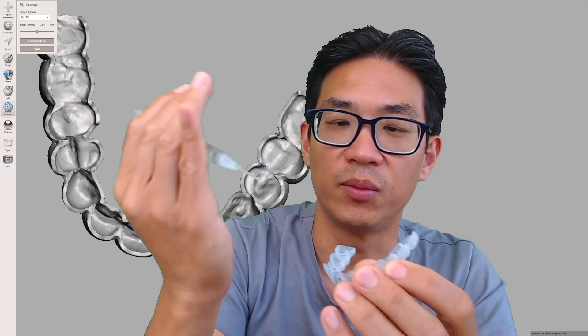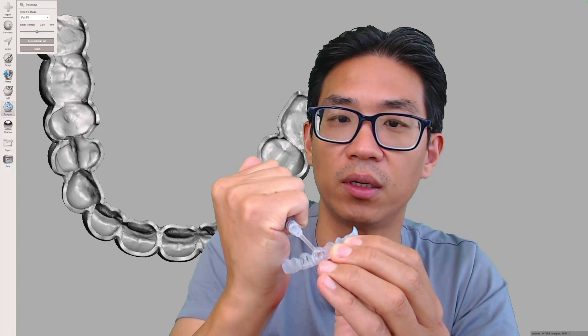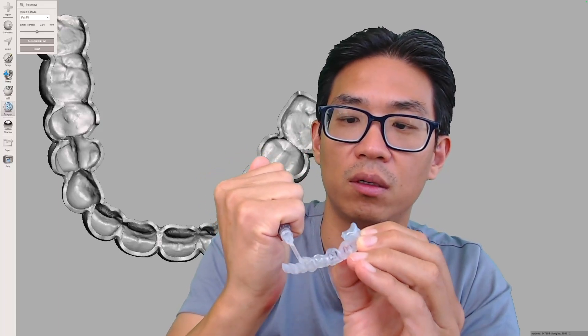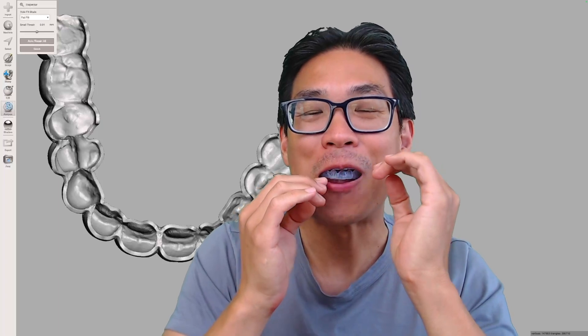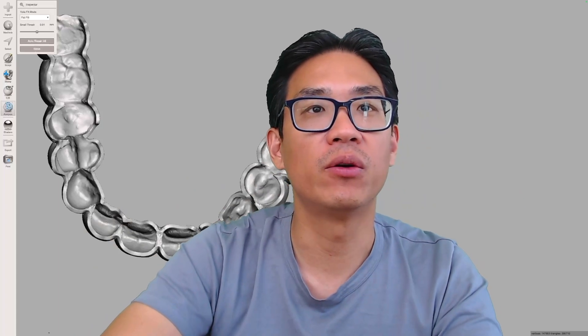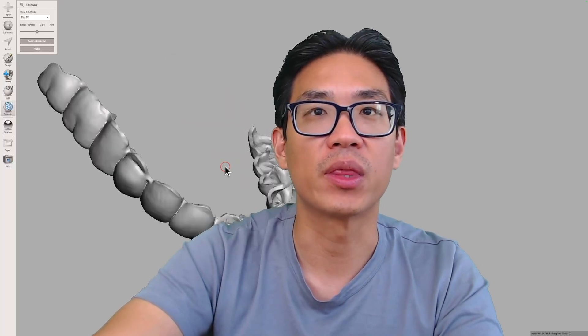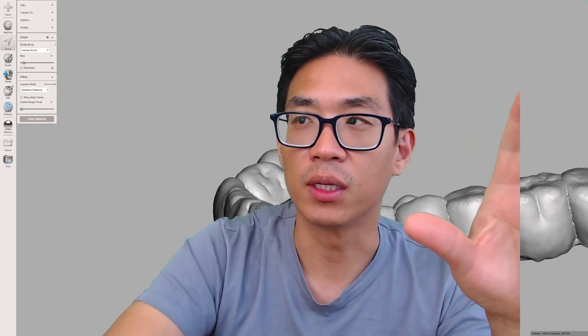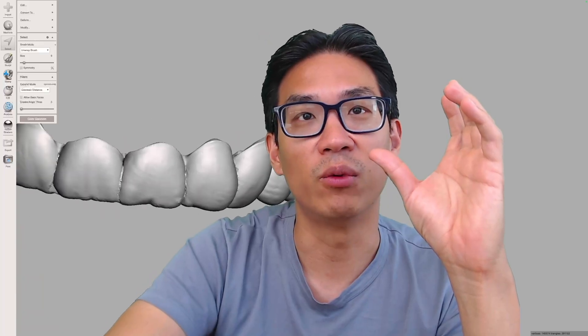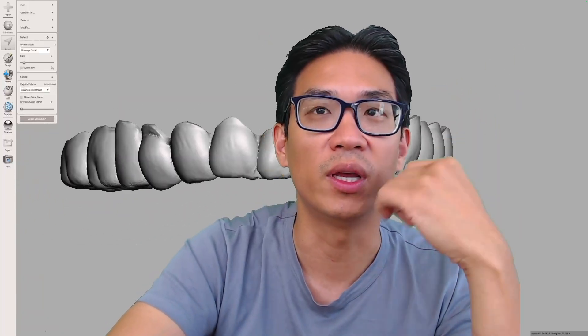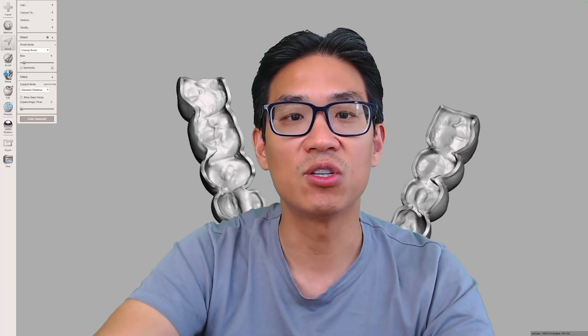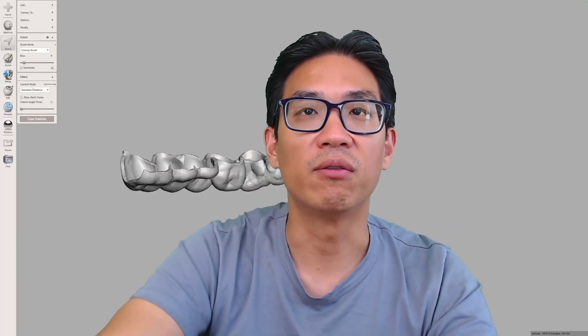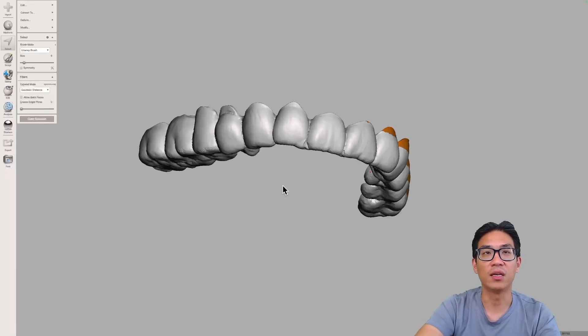I've been using Pola Day. Basically applying the bleach premolar to premolar and put it in. What I will say in terms of printing, you do want to print it flat. You can't do at an angle because the print will fail. Print flat, Keysplint Soft, cure regularly and then also cure in glycerin because it will have a weird taste or stickiness to it which patients may not like. It will go away eventually, but just get rid of the oxygen inhibited layer. Hopefully you find it useful and a way to make trays without doing the suck down and find another use for your 3D printing. Hope you found this useful, have a good day, thank you.